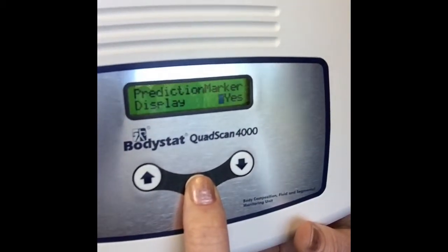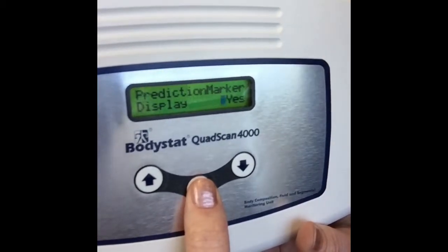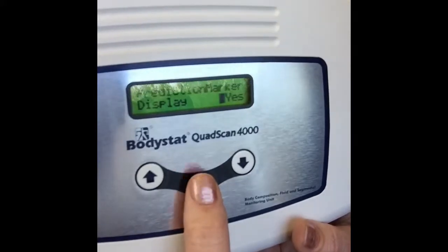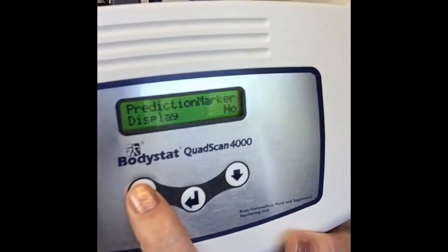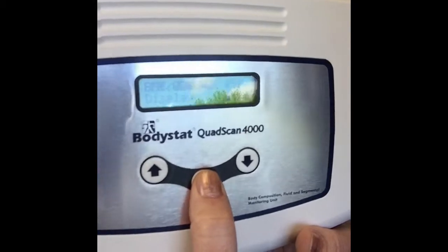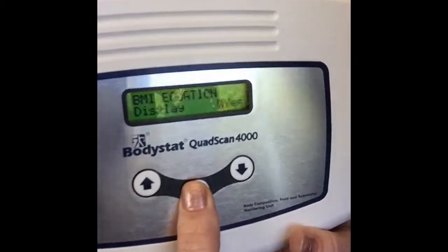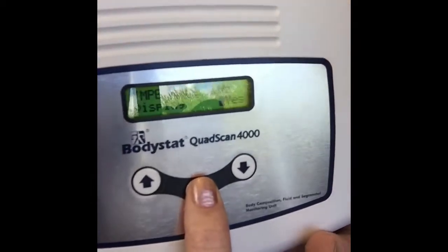The prediction marker is useful — sometimes people are only interested in it, so you can turn off every other screen and only show the prediction marker, which helps you avoid scrolling all the way to the end to find it. You can also toggle your basal metabolic rate, estimated average requirements, BMI, all your indexes, and your waist-to-hip ratio on or off.